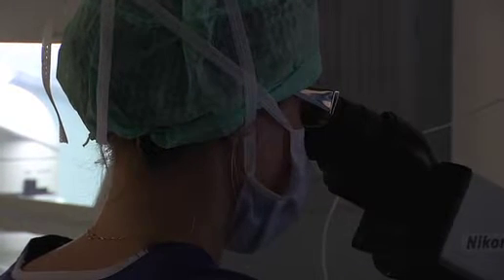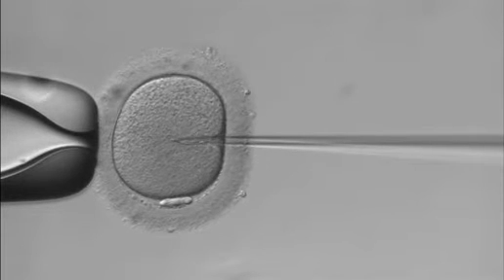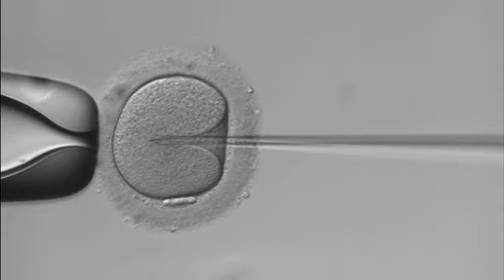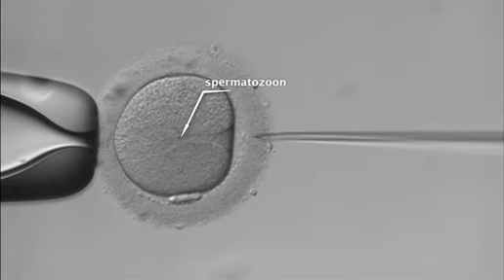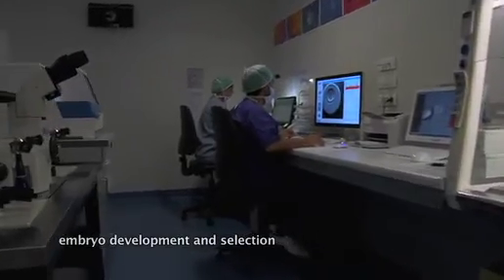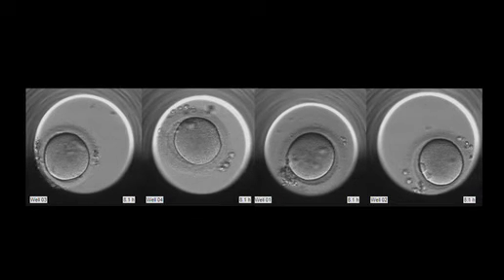Two micropipettes are used for ICSI: a holding and an injection pipette, to be able to catch a single sperm and directly inject it in the oocyte cytoplasm. This procedure must be performed very carefully with special attention not to damage the oocytes, though human oocytes are very resistant to this procedure. The sperm is released in the centre of the oocyte inside the cytoplasm. From this moment on, the oocytes will be incubated. Different types of incubation are available in our laboratory. Here you can see an automatic system where the oocytes and embryos can be visualised remotely without having to take them out from the incubator.